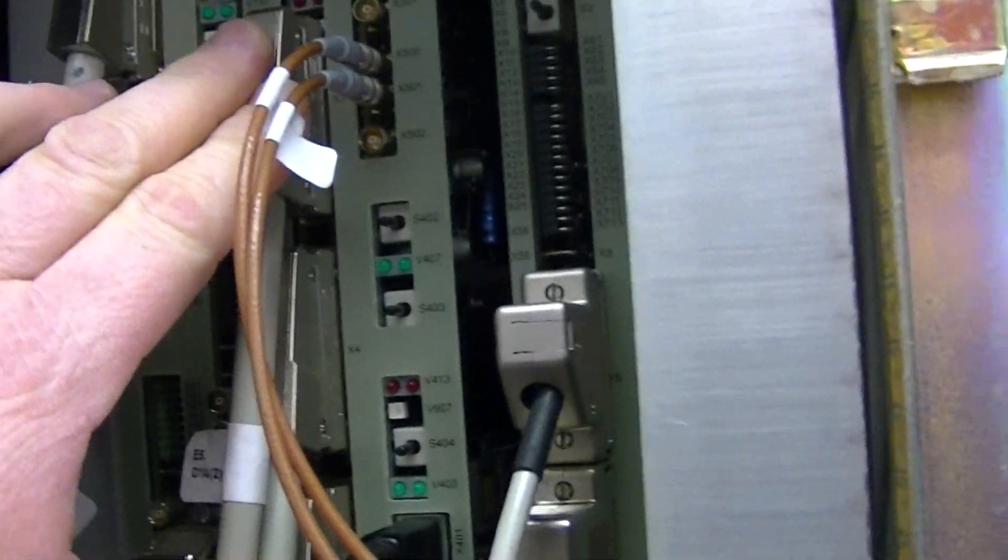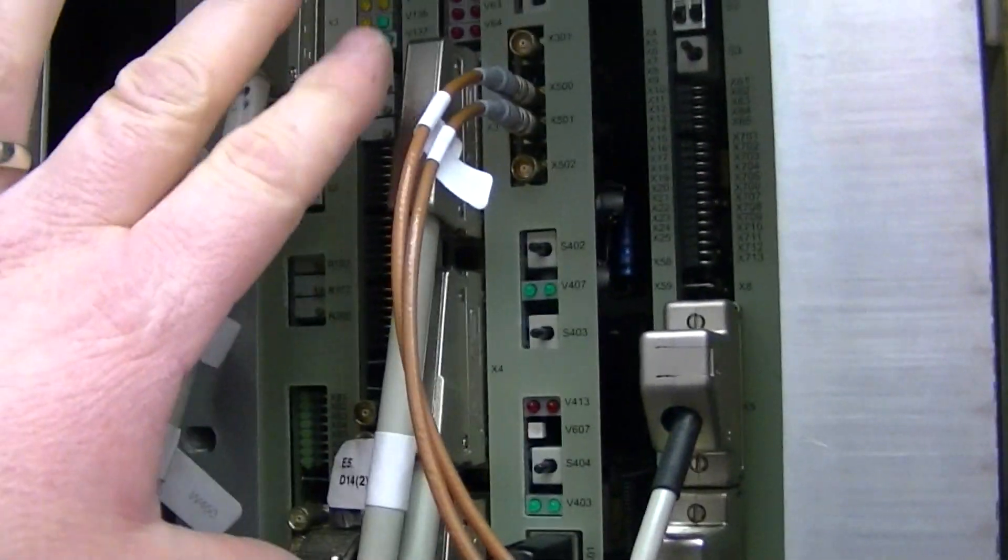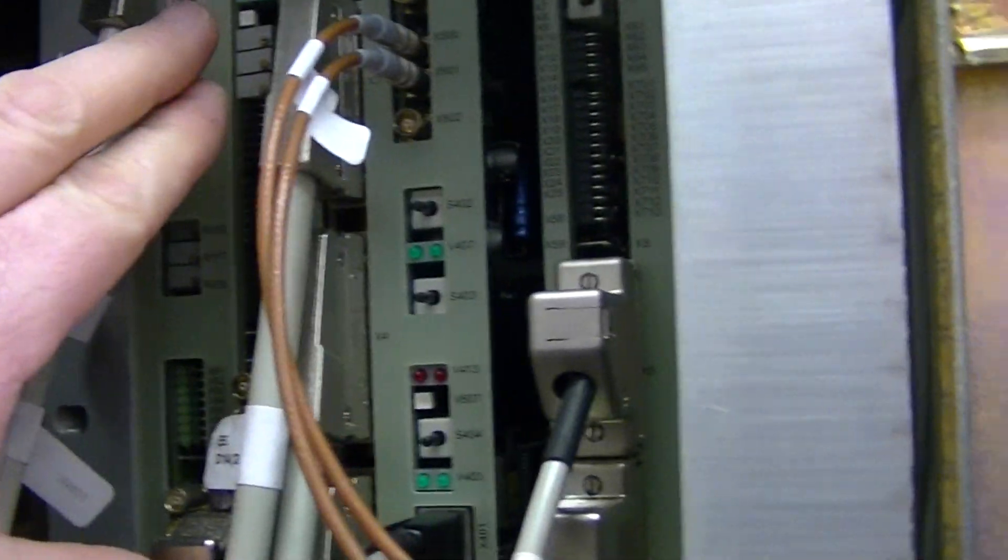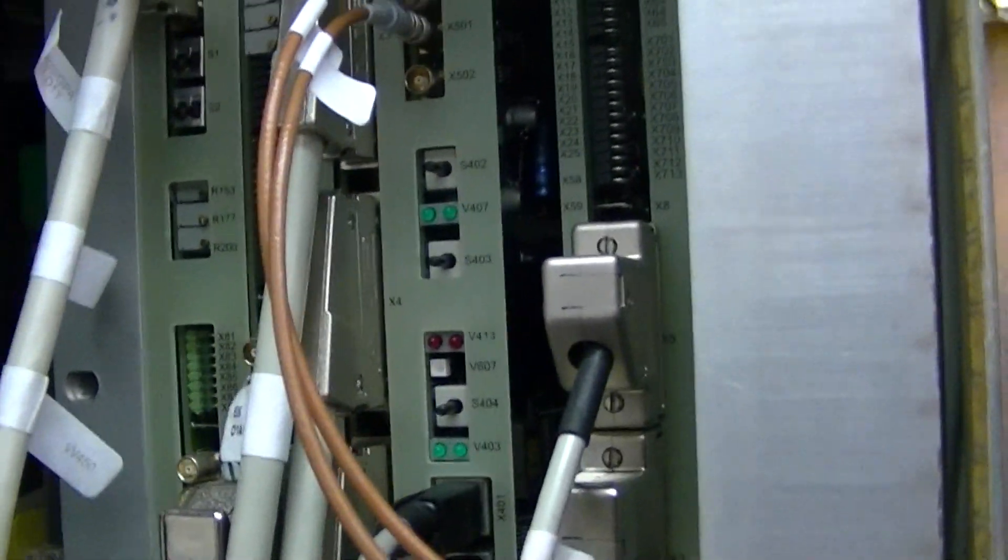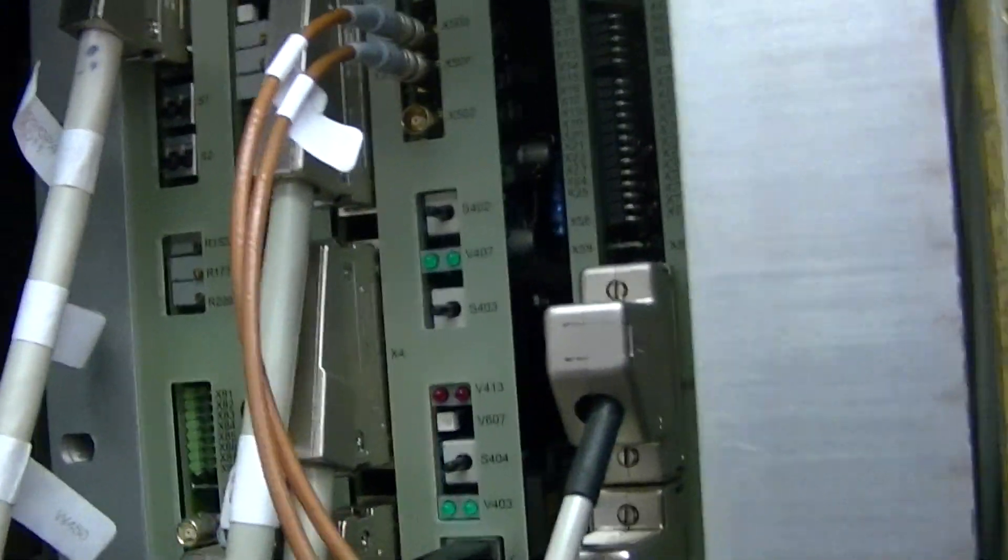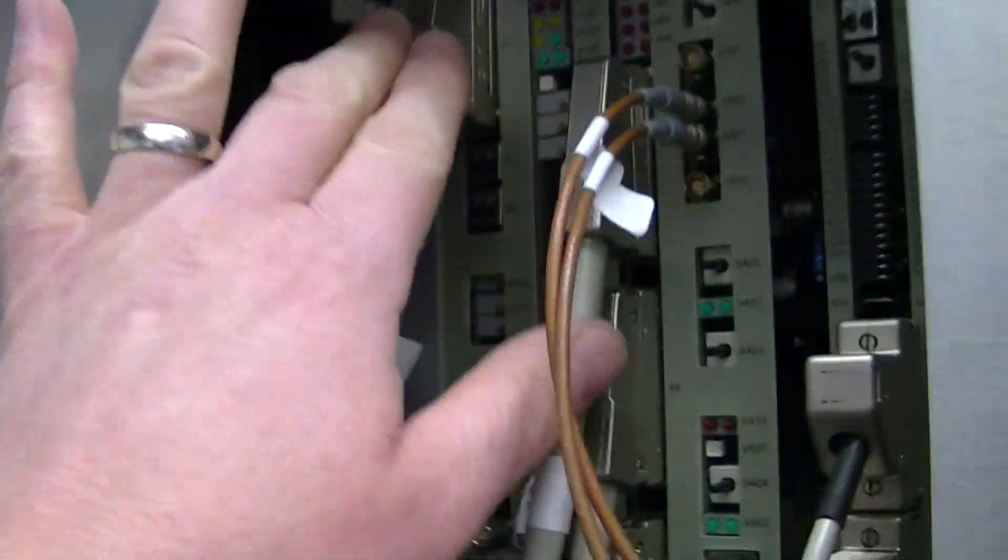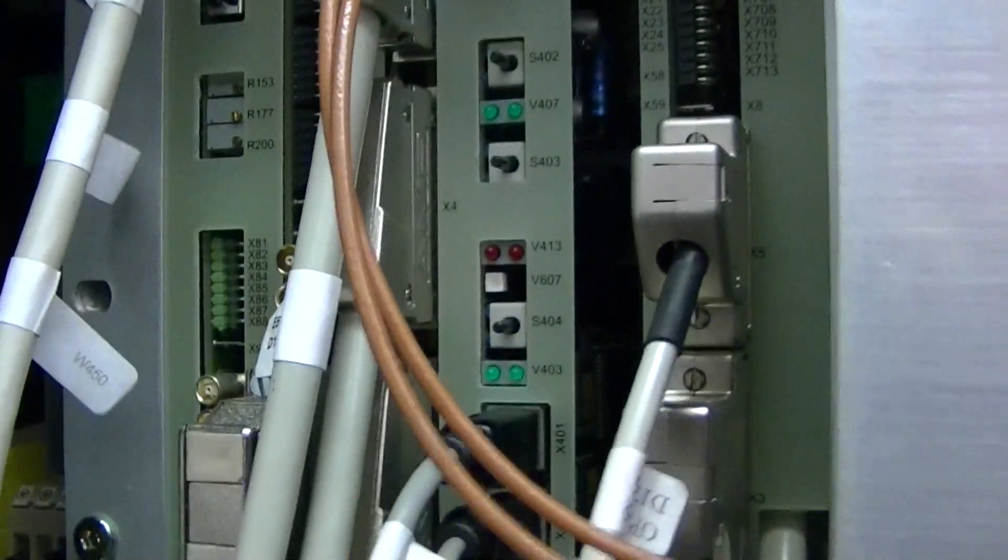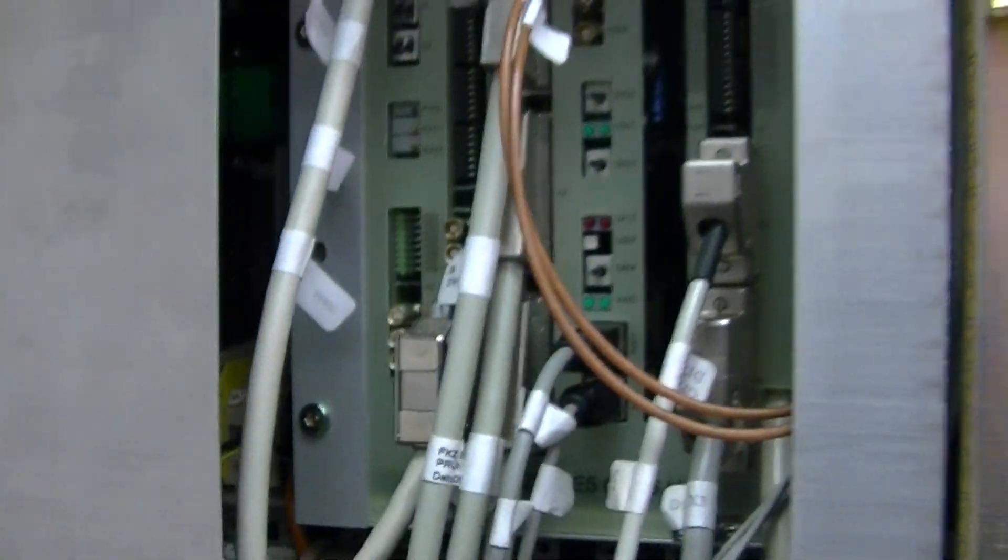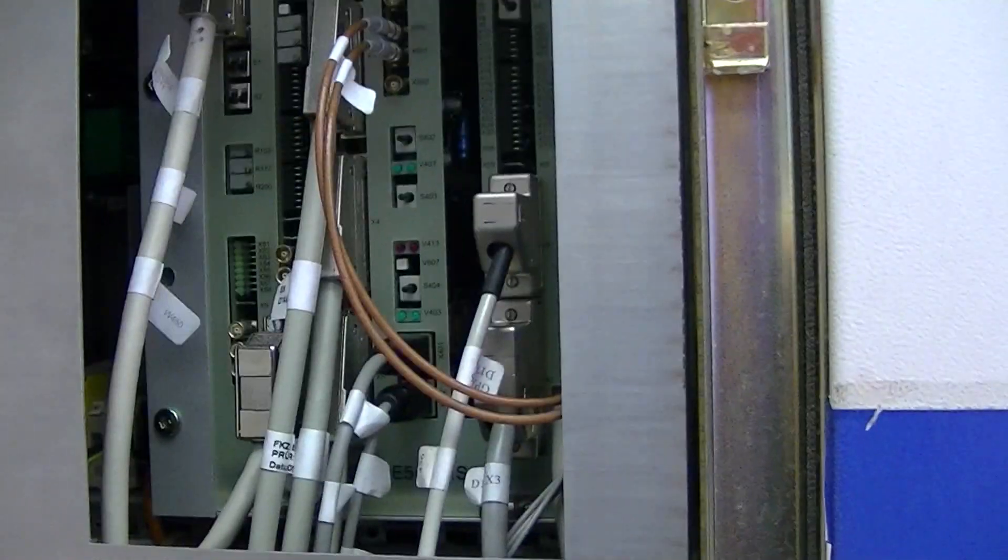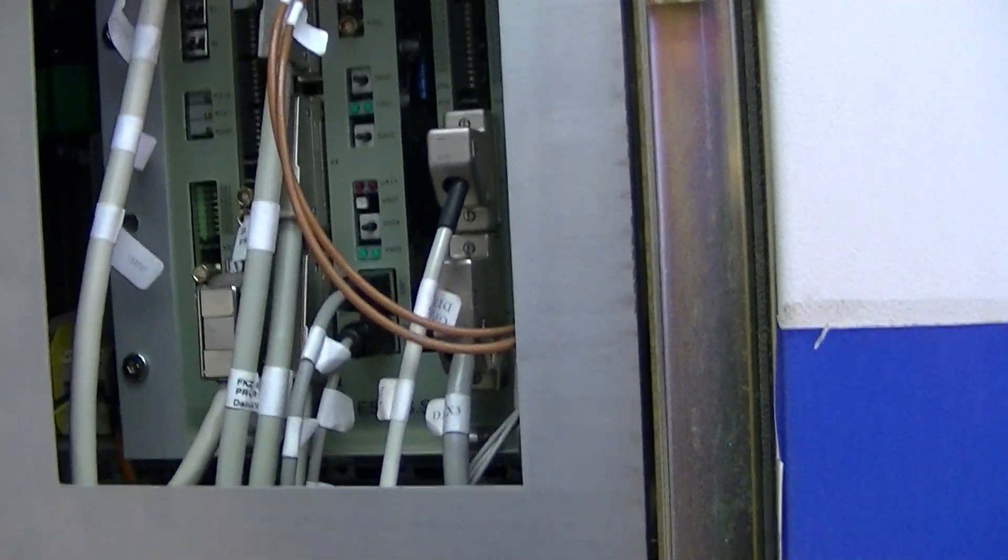The D12 before that is the regulator. That's what is used to keep the power you need per scan. And then the D11 is your DAC or your digital analog converter. So that's going to take all the stuff from the MPCU and convert it over into your scan parameters.